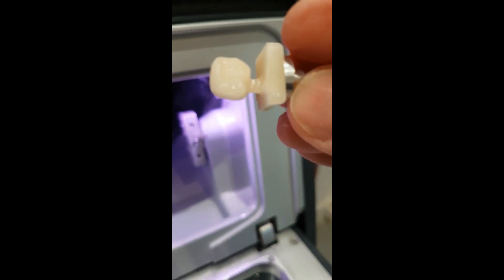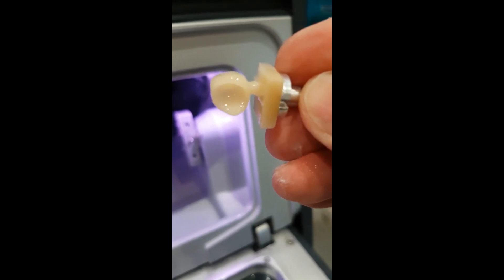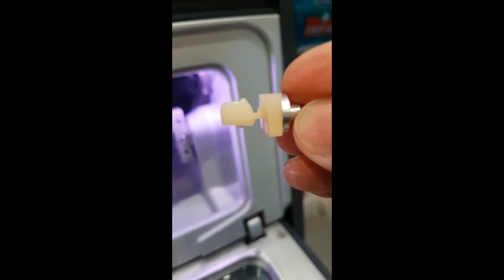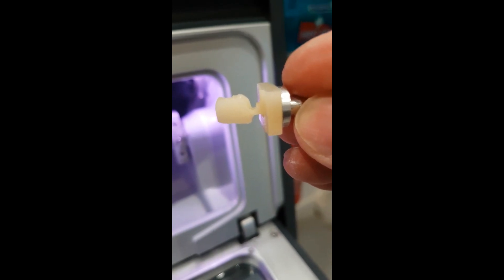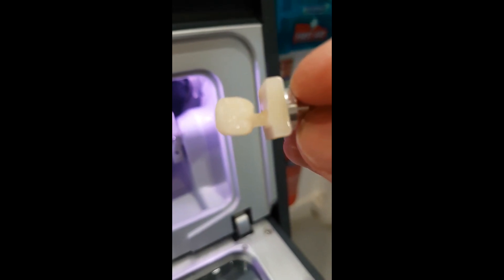And there we have it. If you look carefully—don't even have to look too carefully—you can see the polychromatic nature of the material.